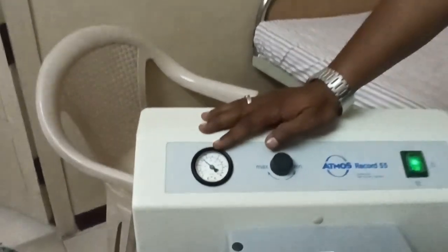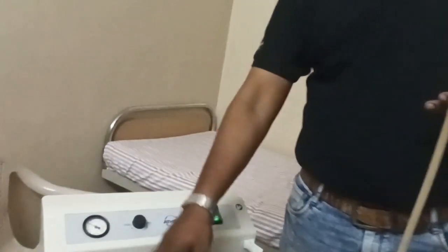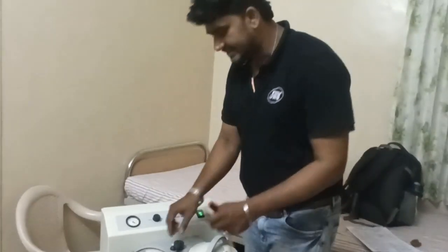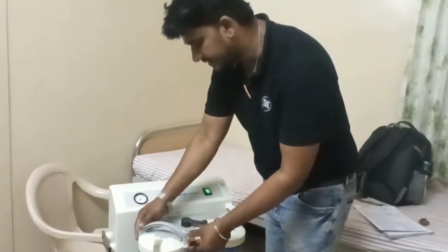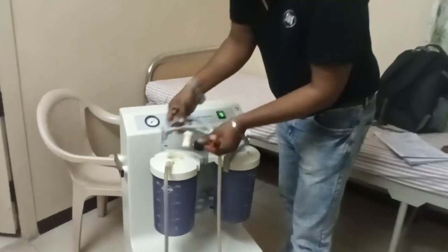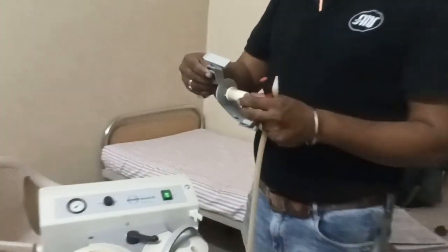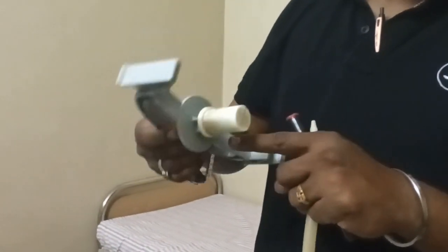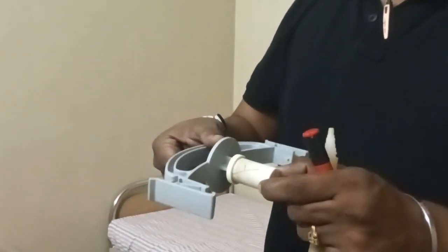That is the complaint the customer raised. The actual issue is inside — there is a filter inside the door. I'll show you: just open this cap and you can see the filter. You can see the color has totally changed to brown.